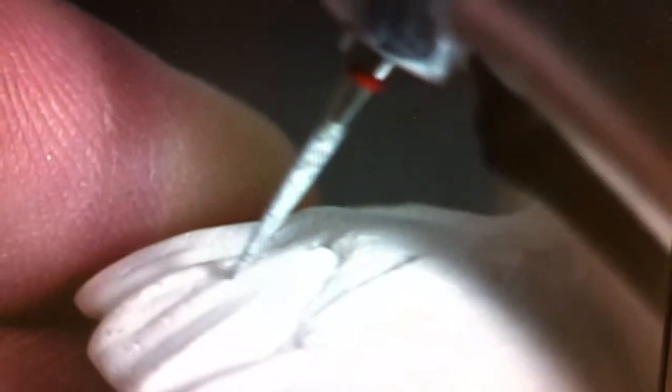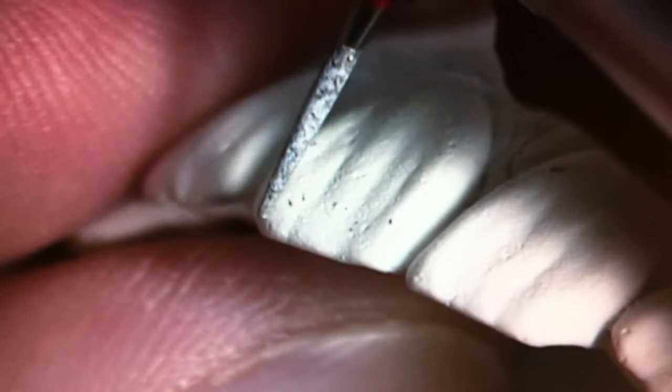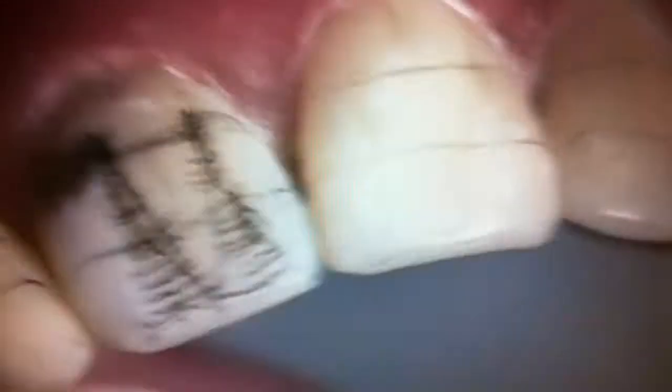You see it right there? On the distal. See, the meso is convex, and the distal is slightly concave right there. Okay? So you want to make sure, can you see the shape that goes up and down? The shape goes up and down towards the point angle. So what I want to do, first, let's work on the mesial one.